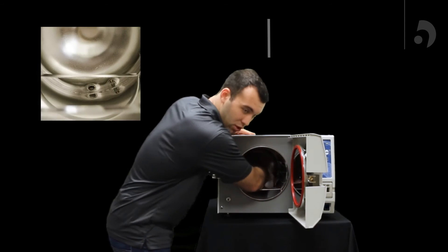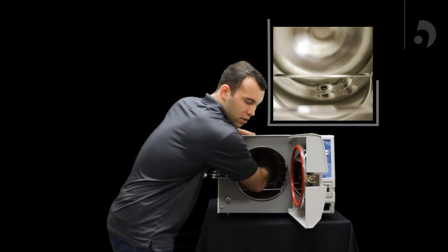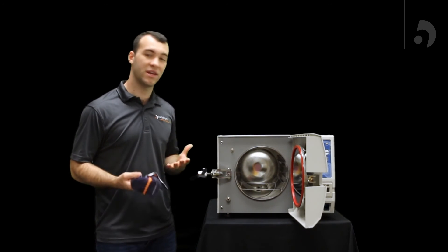You want to make sure you grab a cloth and just wipe around it, and on top of it. And once you've done that, it should be good to go. The water will come in in the correct amount.